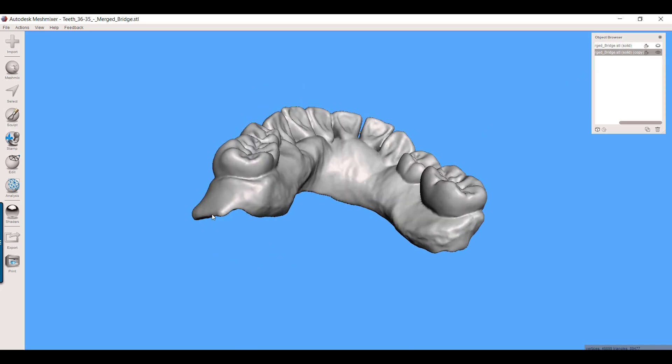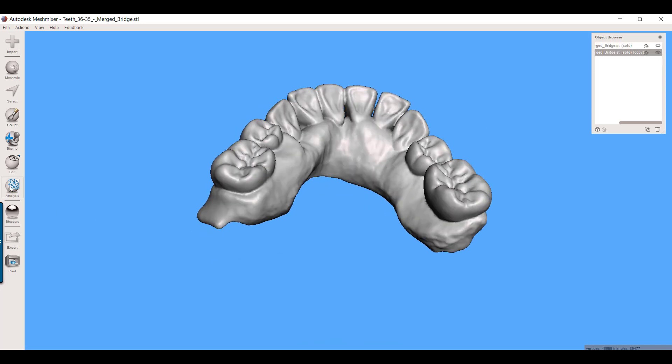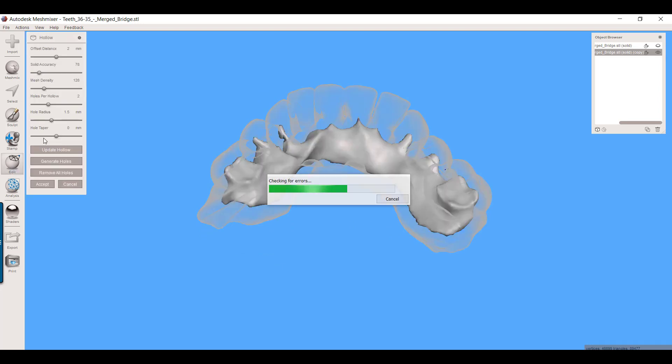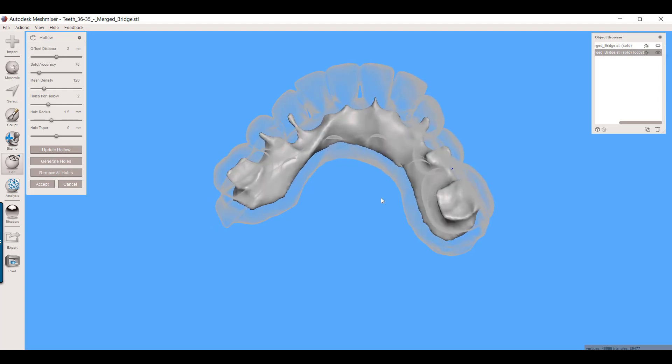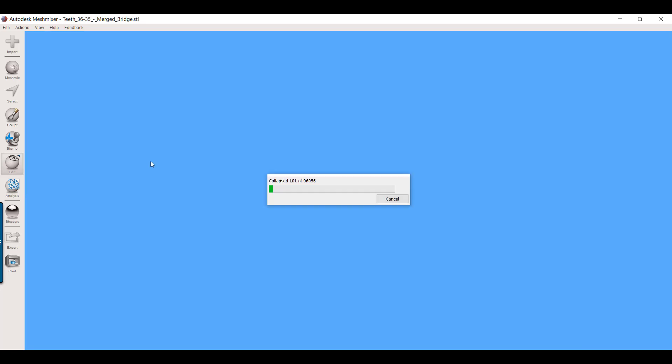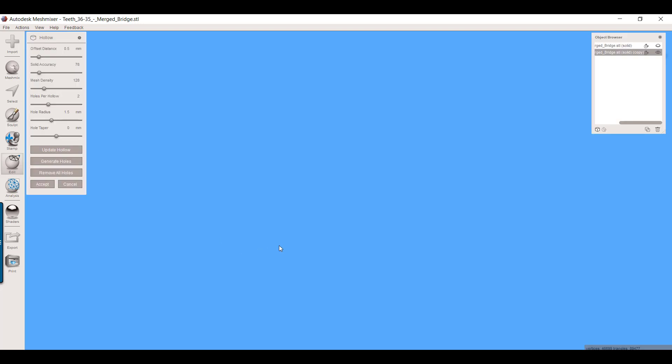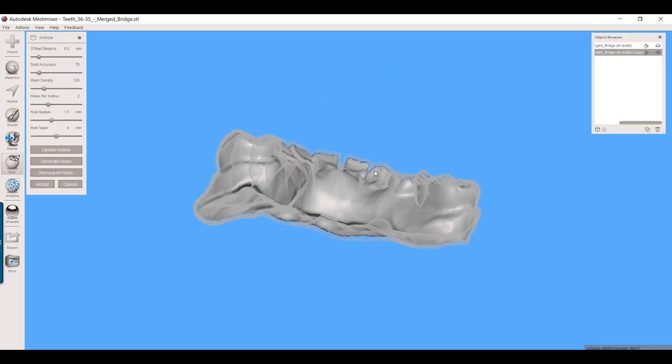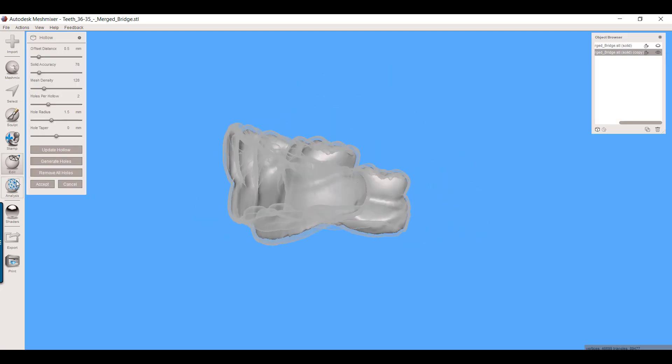What I will do first is I'm going to take this temporary and I'm going to hollow this. Now what I'm trying to do in hollowing this is separate an inner shell and an outer shell. So you can see how much is it being hollowed by right now, it's 2 millimeters. I want to make this be 0.5, 0.7, something in that realm. So I'm going to say 0.5 and update the hollow. Here you can see what this gives me. I'll accept this. You'll see why I did that here in just a moment.